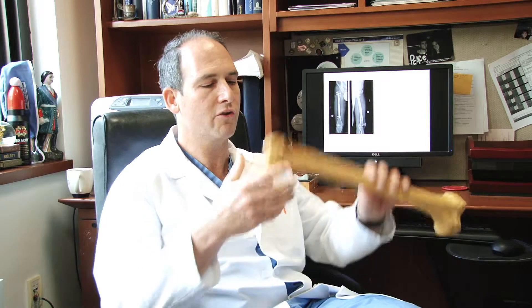If you're going to lengthen a femur, it could be done by putting the rod in either from the top of the bone or from the bottom of the bone, but the typical way — and most often it's put in from the top of the bone — is called an antegrade nailing technique. So I'm going to show you using a plastic bone to demonstrate this technique.